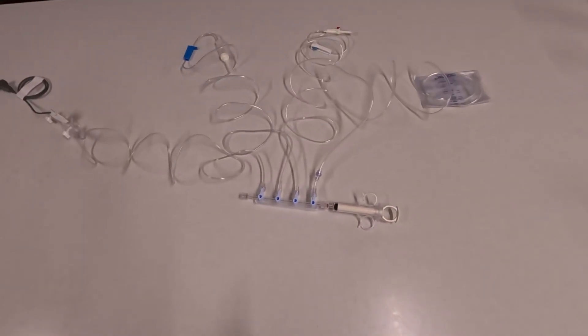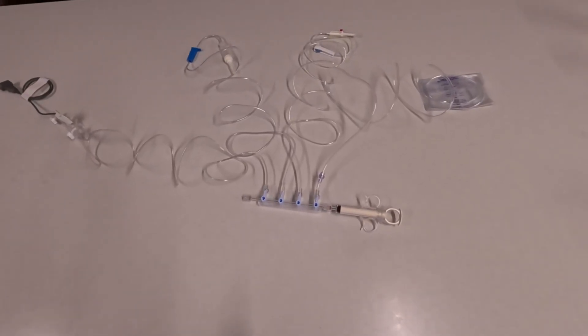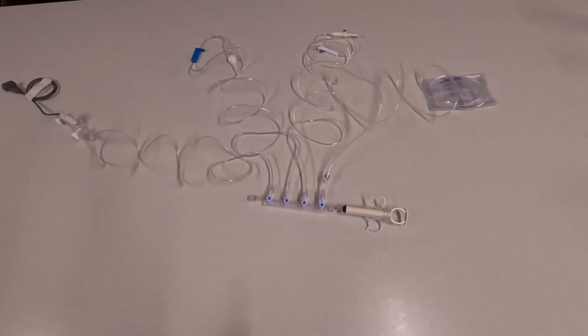The manifold that we use is a four-port manifold. As you see here, it has four different channels that you can control individually.